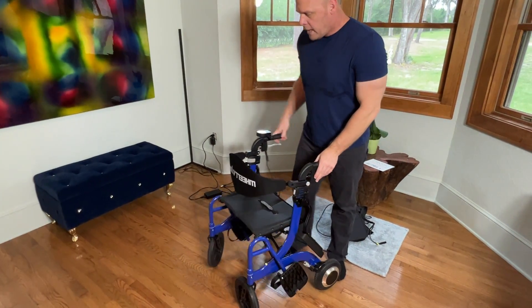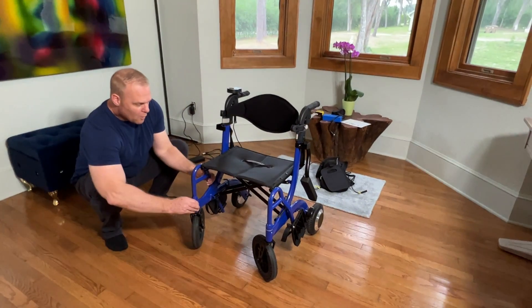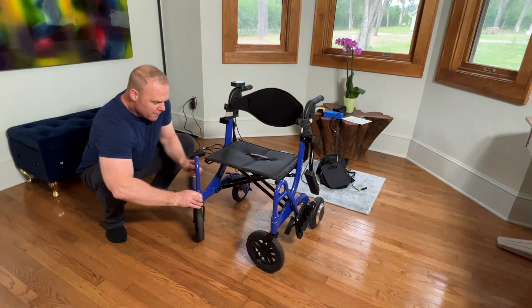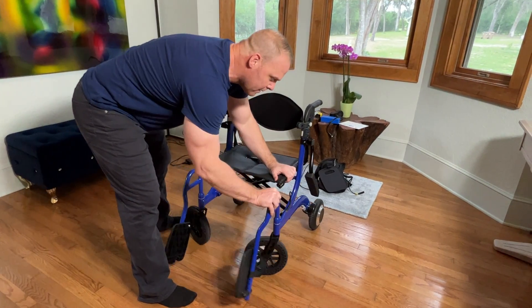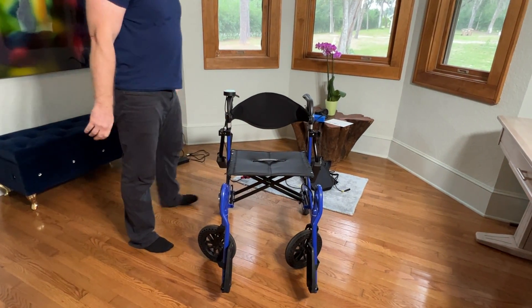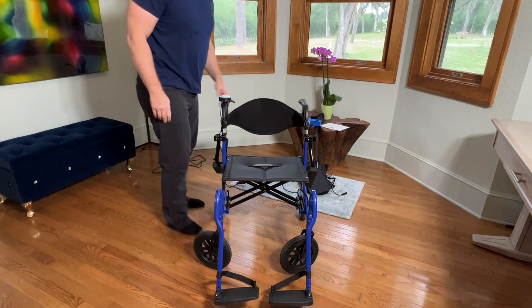I can do a lot of things. And of course in just a few moments it becomes a foldable power wheelchair. A couple little knobs right here and then I can put the joystick on and fold the footrest down and it's a power wheelchair. Super convenient.